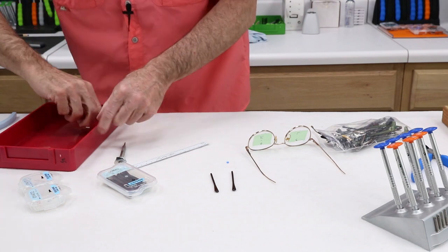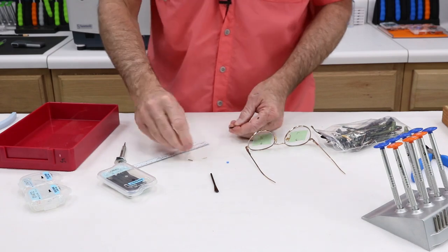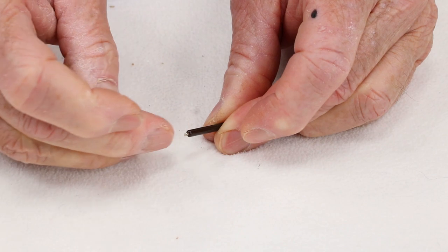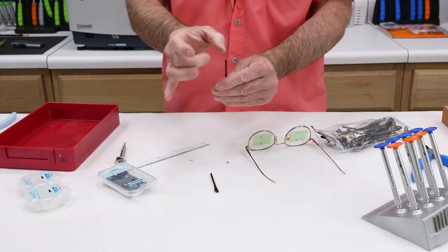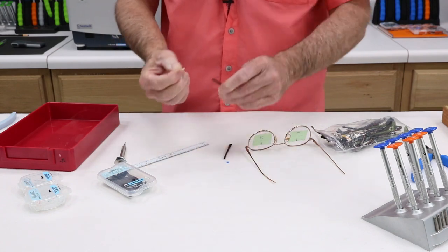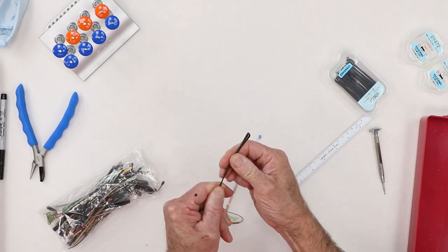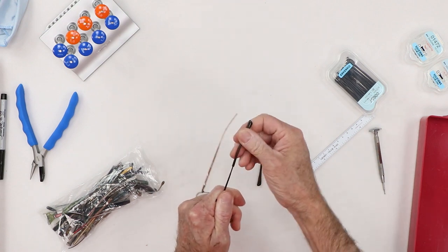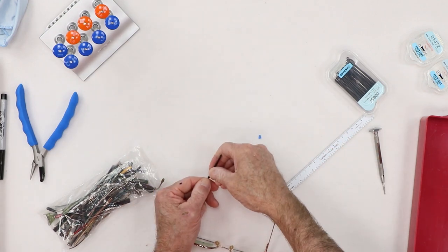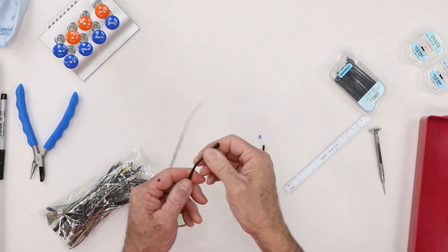Now I've got two pieces. I'm going to take that and load it — preload it in my temple. That is good. That's excellent. That's what you want to see. You want to see it kind of fall in there rather than have to be forced. I'm going to slide that back on. Perfect, perfect, perfect.